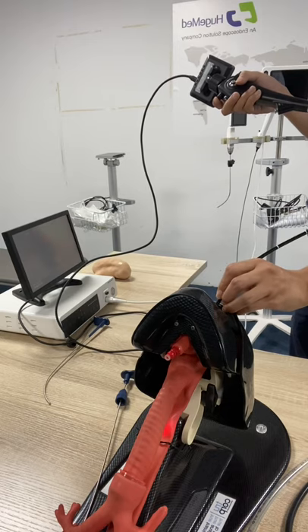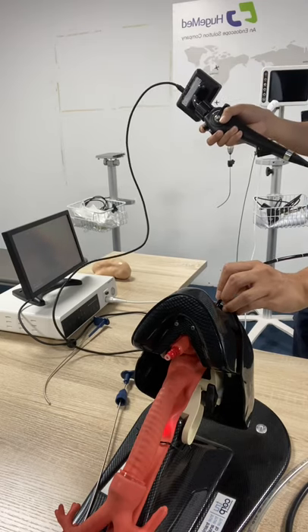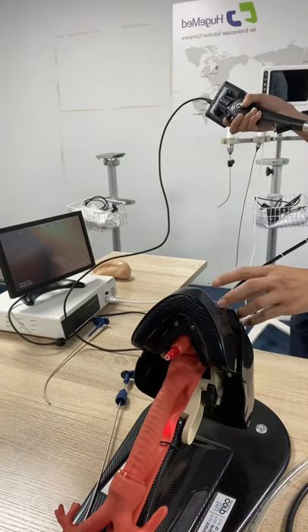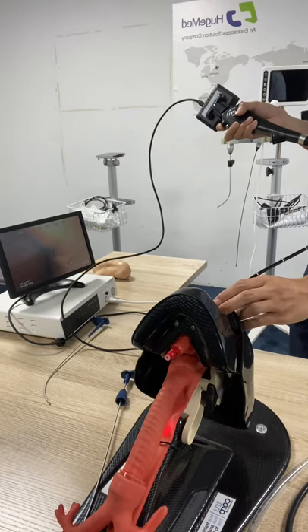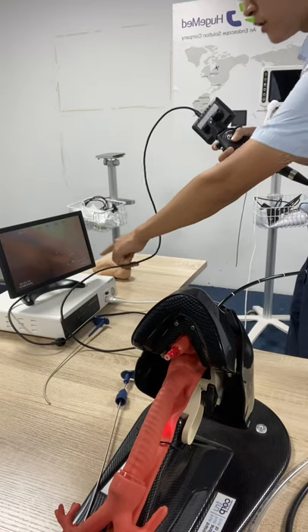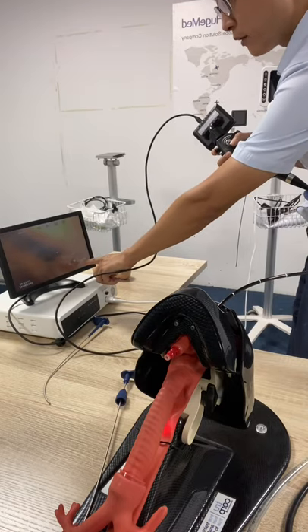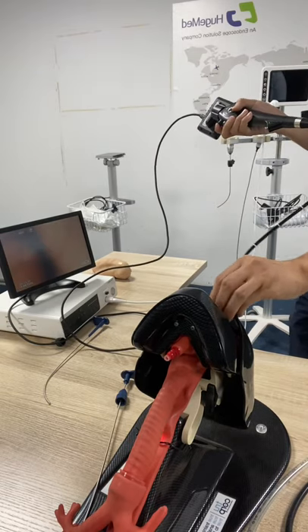It will take a photo. If you want to take a video, just long press this button. You can see the recording is beginning — the timer starts.